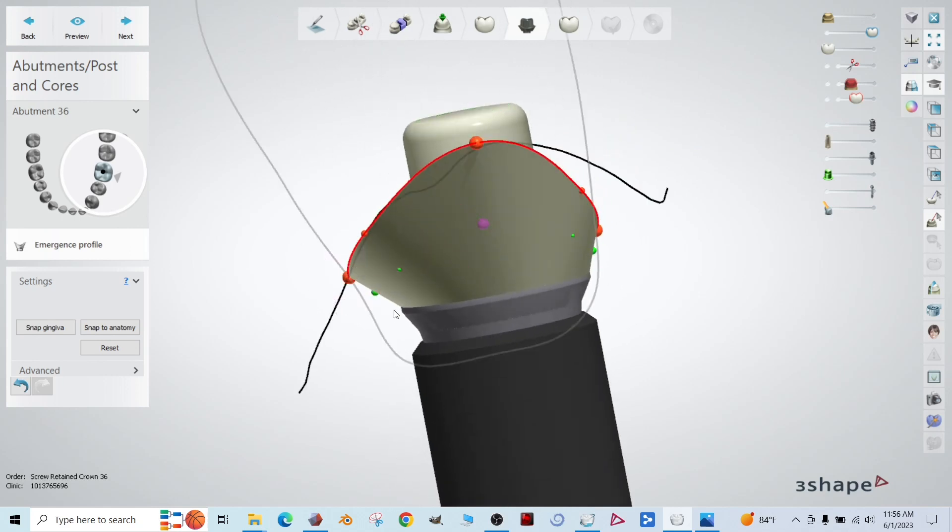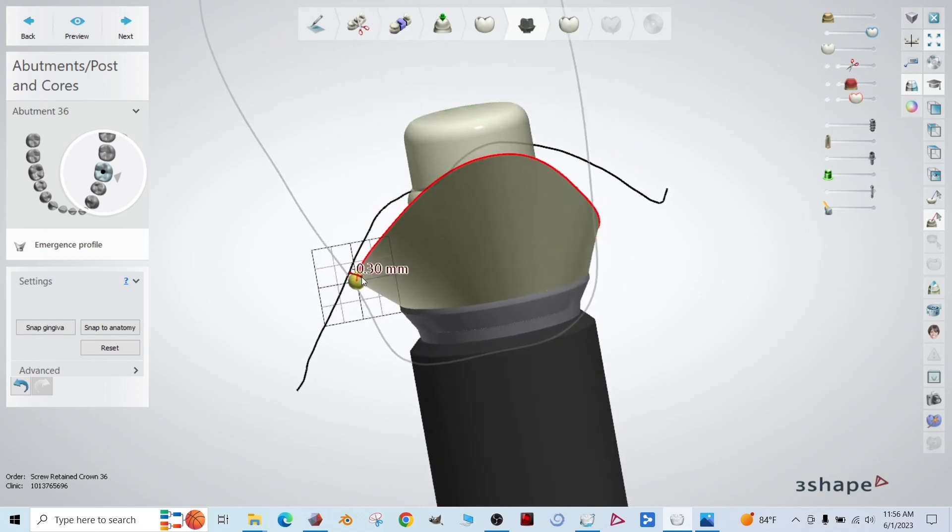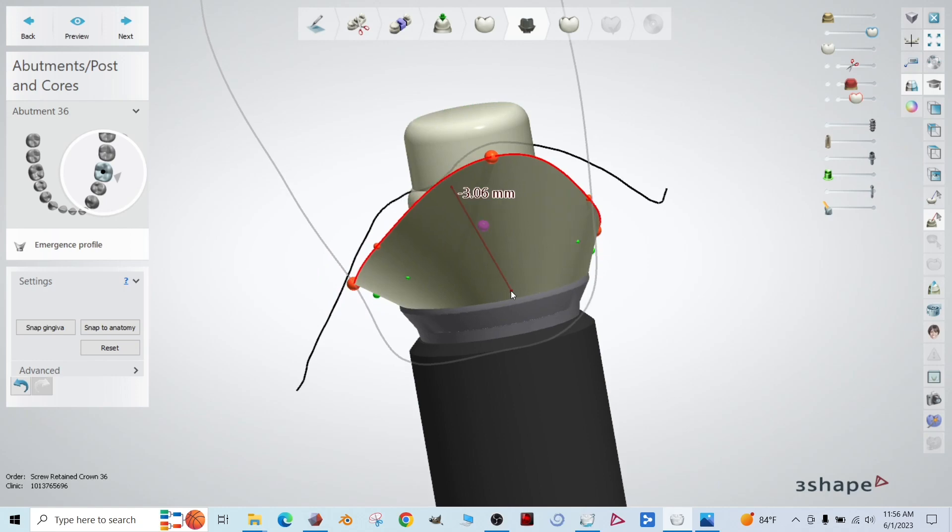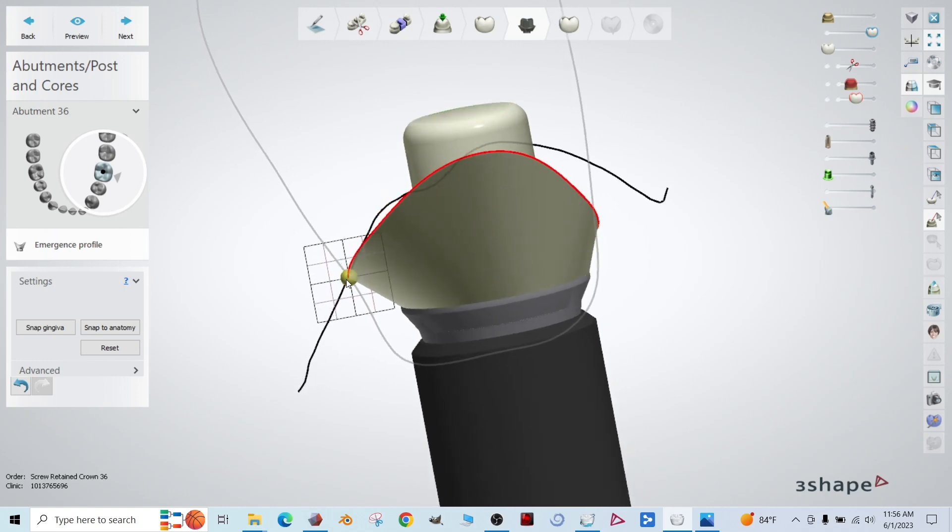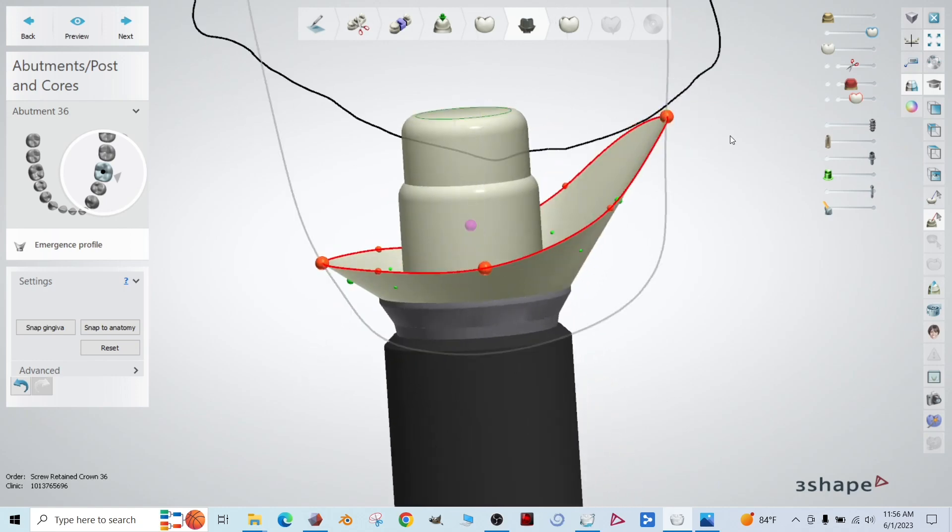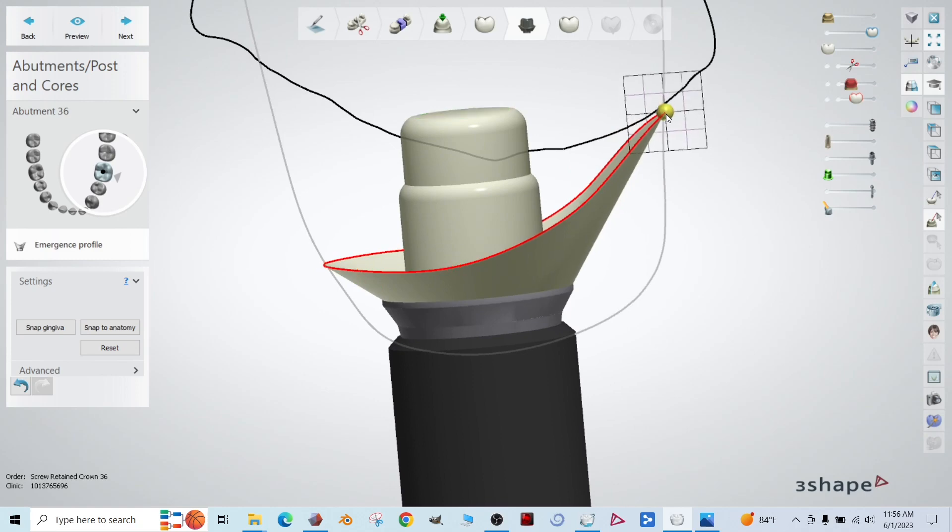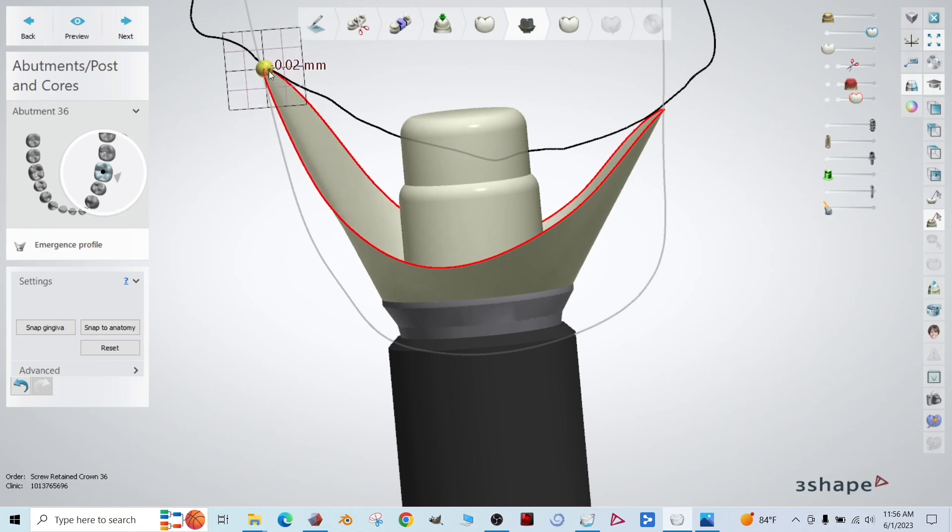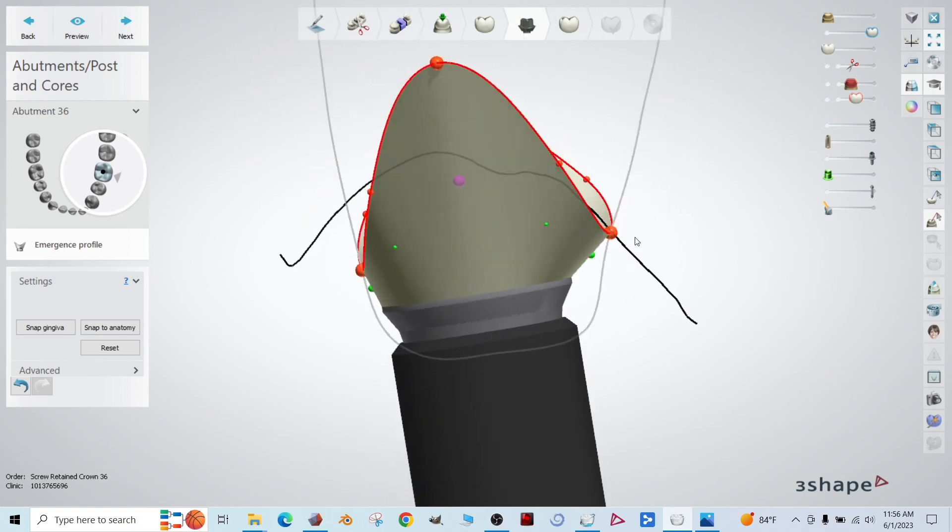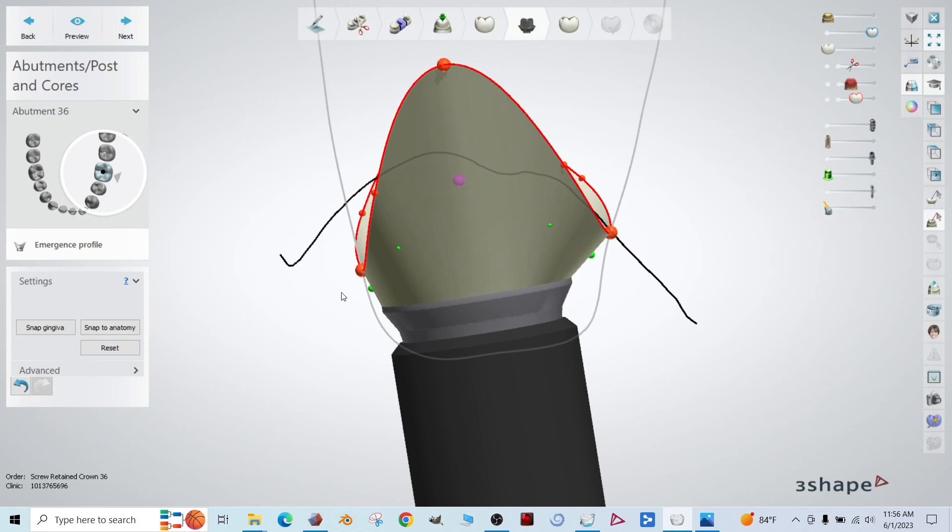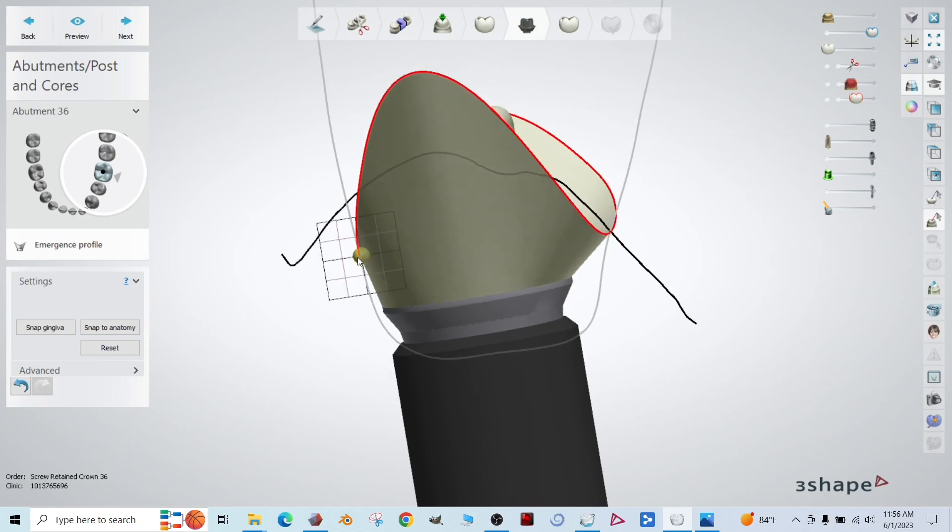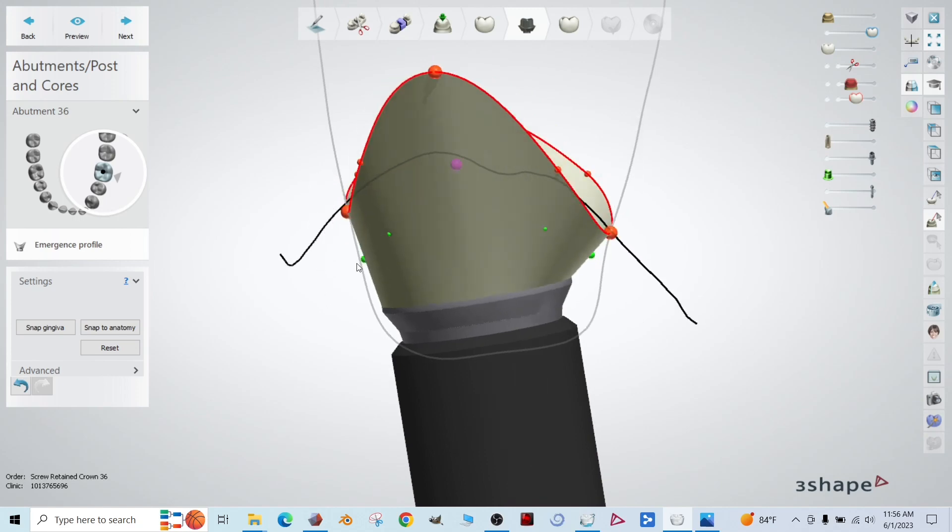Okay. And then we'll do it this side. It's actually really close. Let's bring it just below it. Maybe just right at that one. We're going to bring it a little closer to that intersection there. Okay. And let's grab this dot here, bring it way up there. This one's there. Okay. Now we have this one left. Sweet.